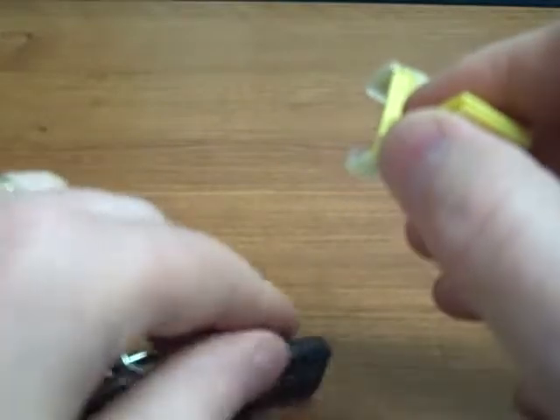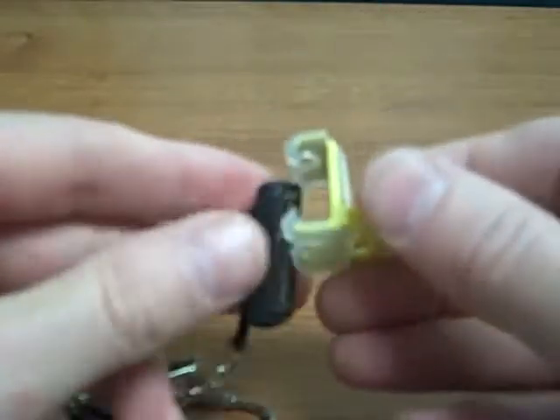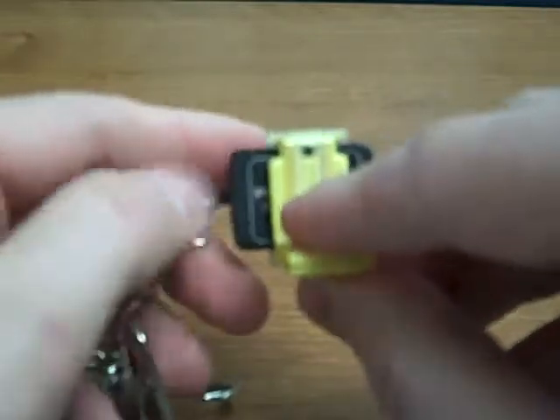For sensors that are available with a size 0, you can actually use this posterior holder with your size 0 as a vertical holder or a horizontal holder. That's just for use with the size 0 sensors.